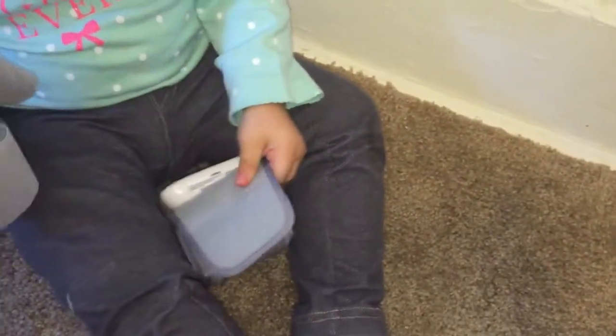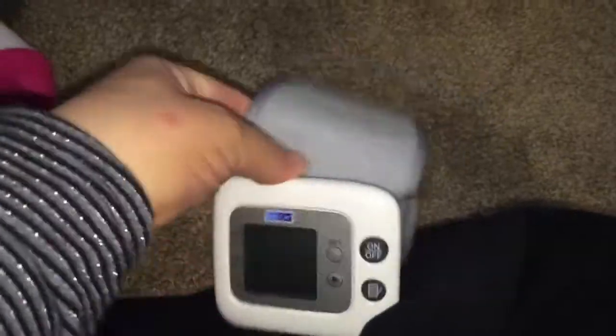This is the one with IntelliSense. They both go on the same way — I put it on my left wrist, hold my arm up to shoulder height above my chest. I just wanted to compare the readings. We'll start with the RelyOn, which I purchased at Walmart.